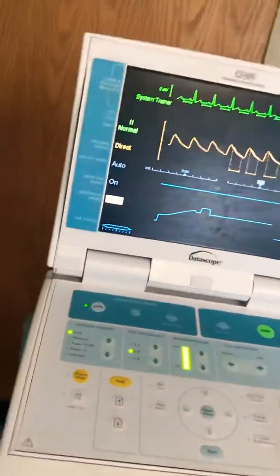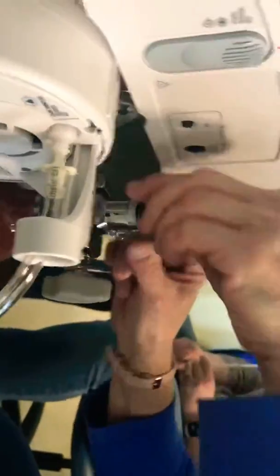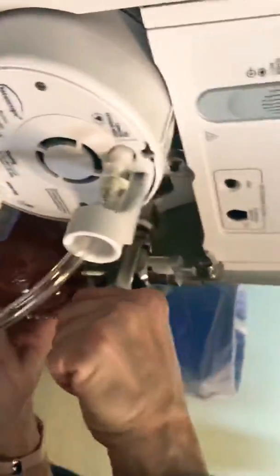Ready? Okay, I'm going to close the tank. Righty-tighty, close the tank. That goes to the internal reservoir. And that little pop is normal.